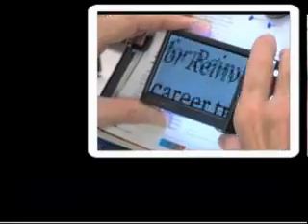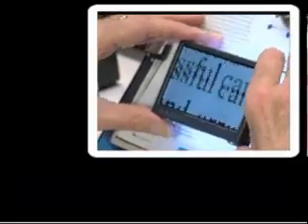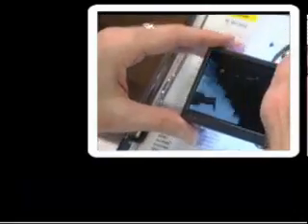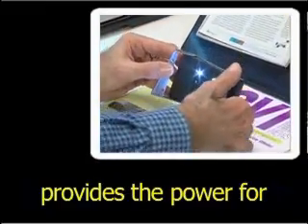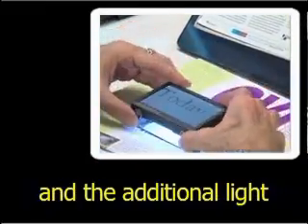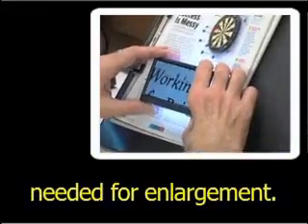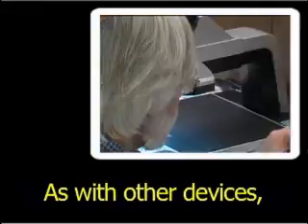The display unit is combined with the camera. Its screen is almost as large as the unit itself, about 3 inches by 4 inches. A rechargeable battery provides the power for both the magnification and the additional light needed for enlargement.